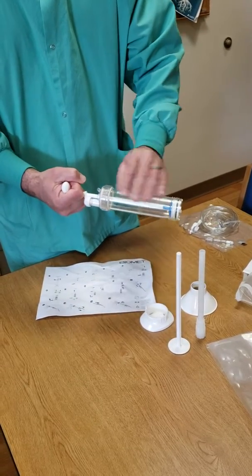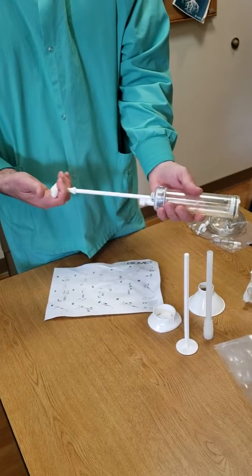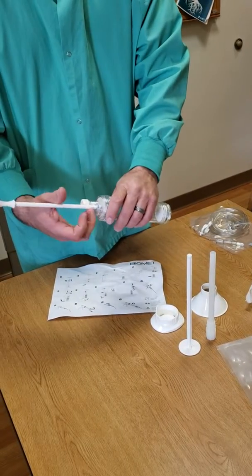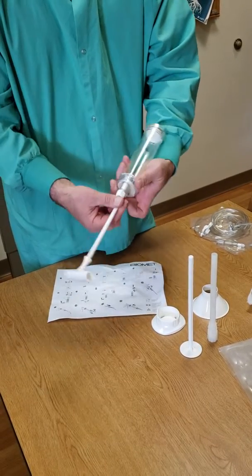When it's all mixed well, there's no clumps in there and it looks nice and smooth. Extract it all the way. There's a score here. This will break off.